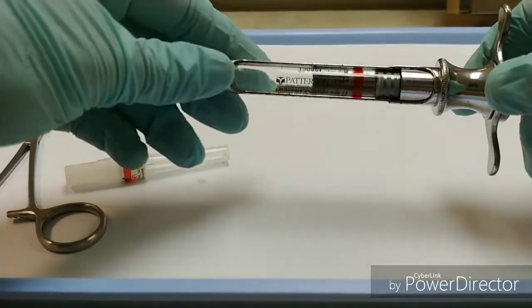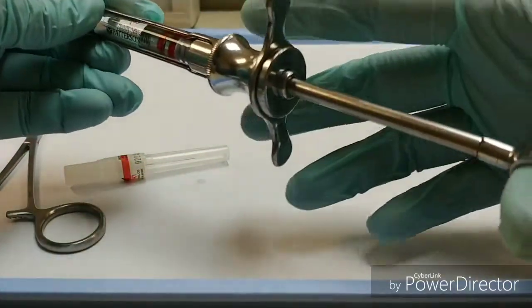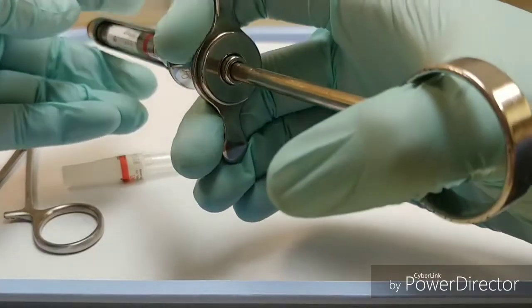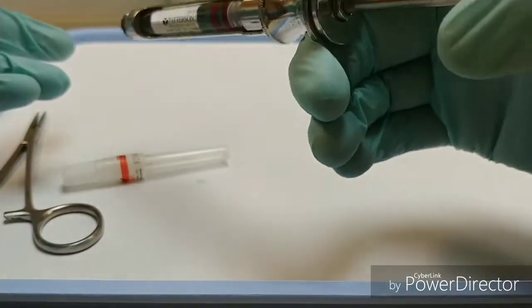And then I'll want to engage my harpoon, so I can do that by putting some firm pressure on that thumb ring, and I can feel that engaging.